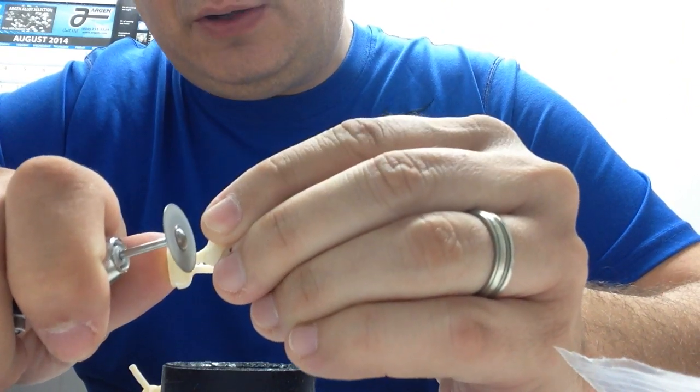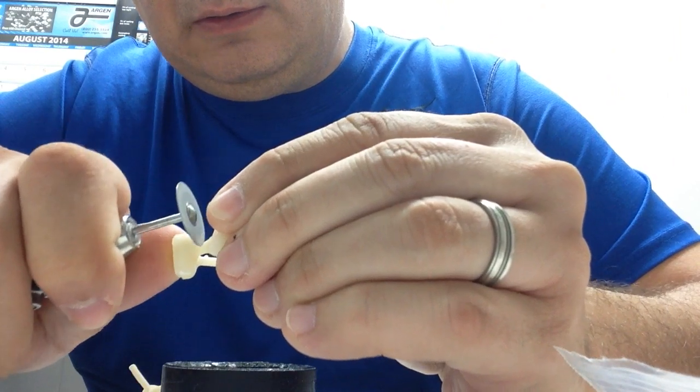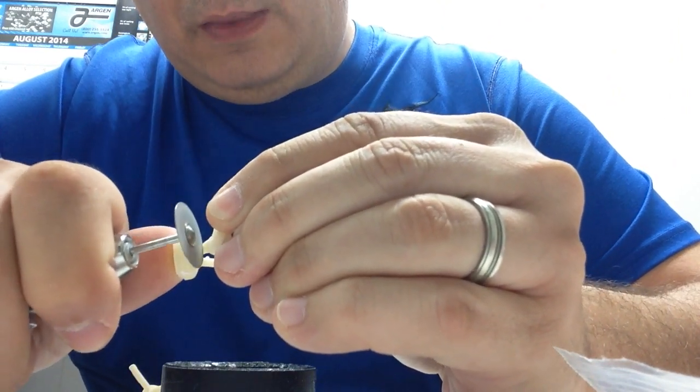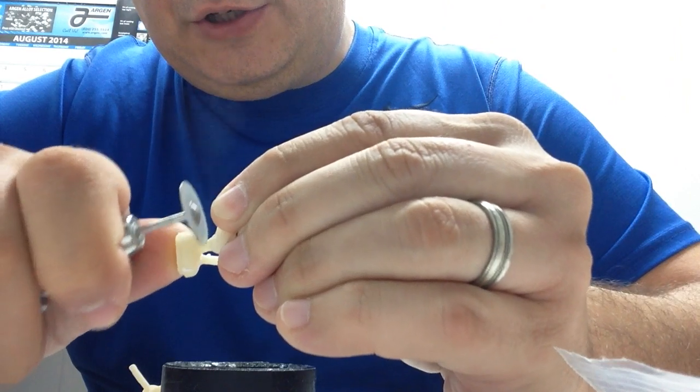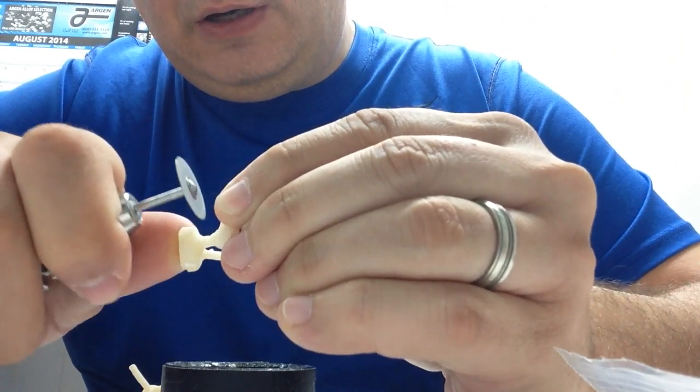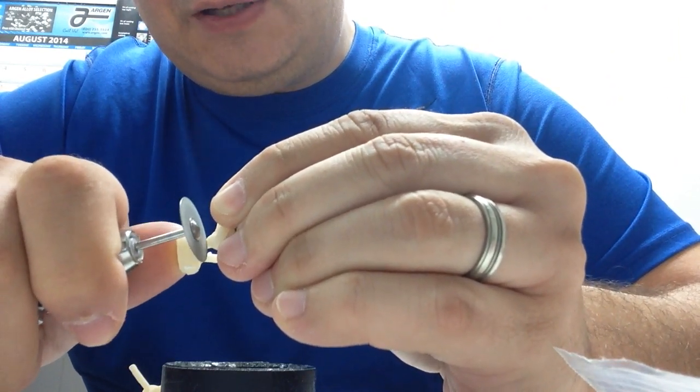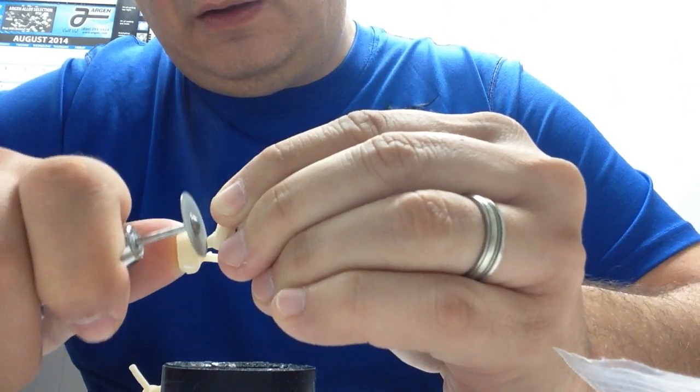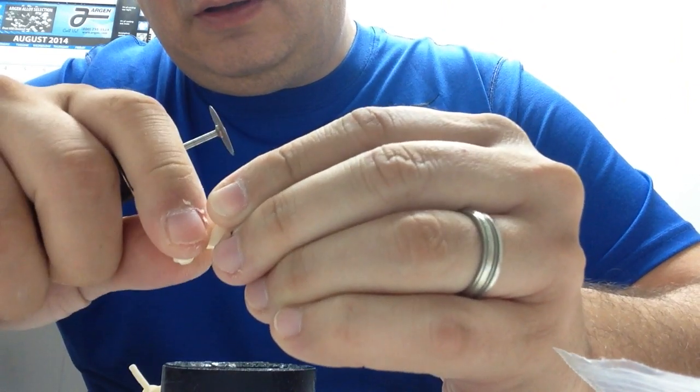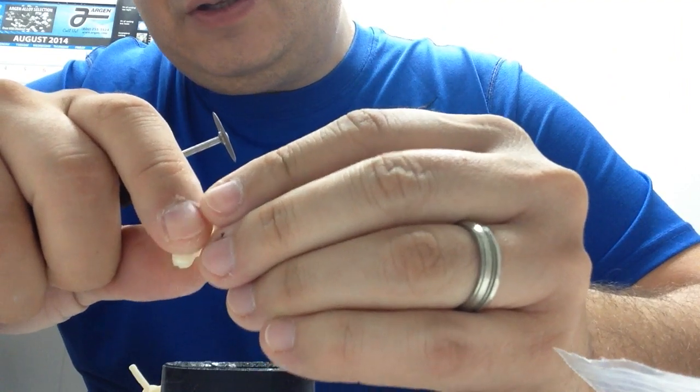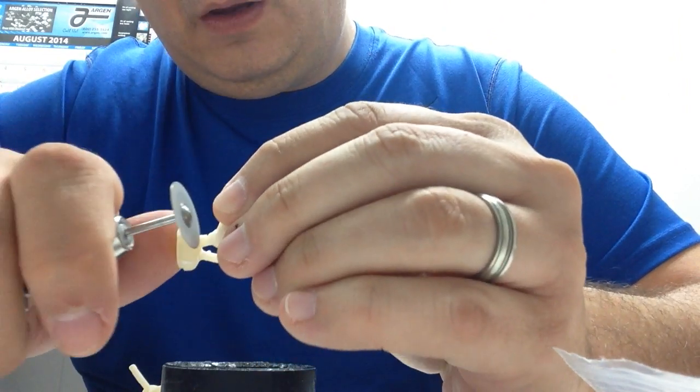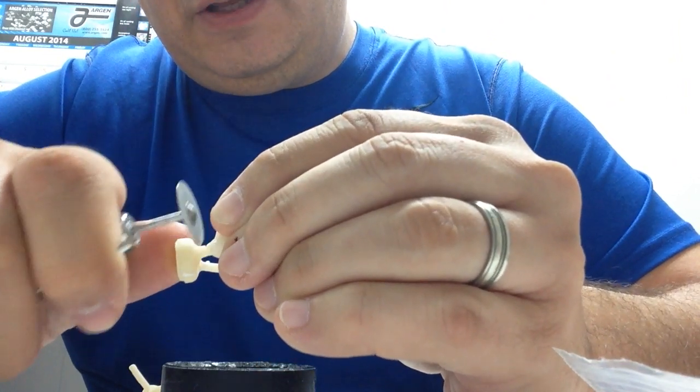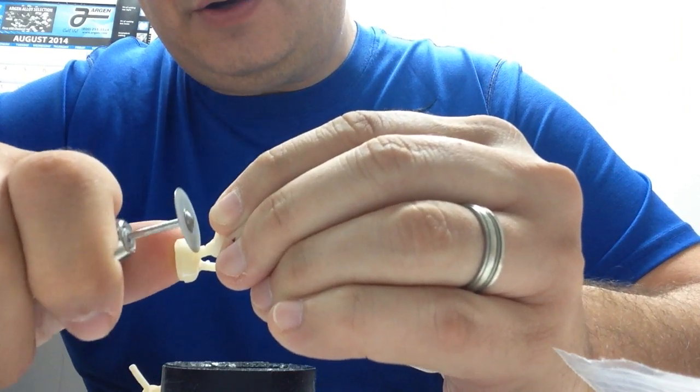So this is how I do it. I am just going in one direction to cut and remove and give it like split a second to cool down. And you can feel if you put the finger, it is not even warm. So it is not overheat and creates micro cracks.